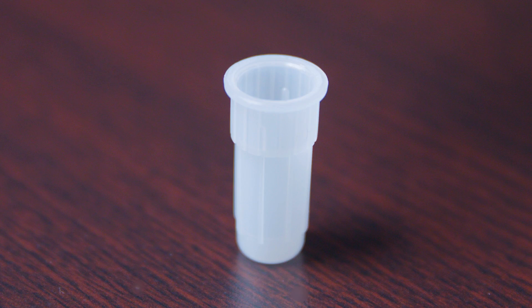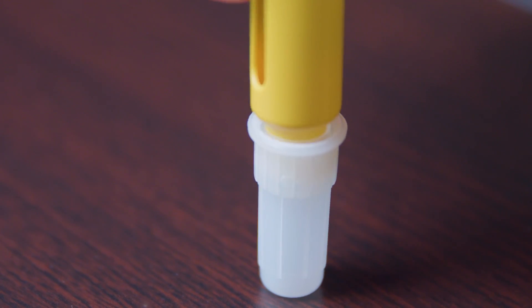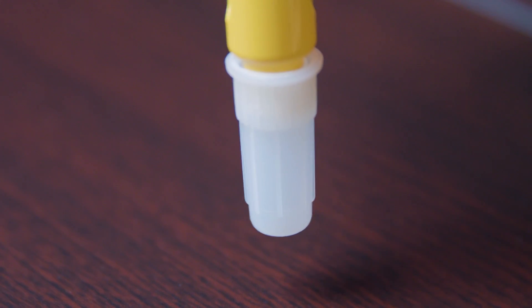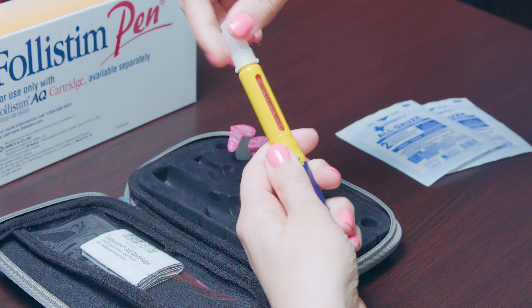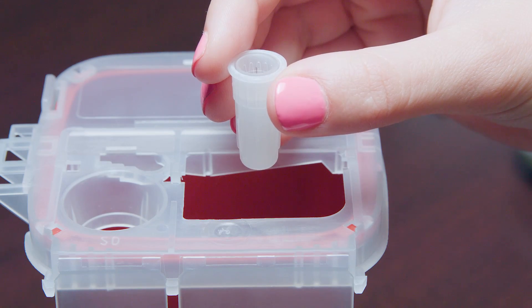Place the outer cap of the needle from before on a flat surface. Do not hold the cap in place or you will risk puncturing your finger. Place the needle into the cap with enough pressure that the lid does not fall off. Once the lid is firmly on the needle, unscrew the needle and cap from the pen. Place the needle into your sharps container.